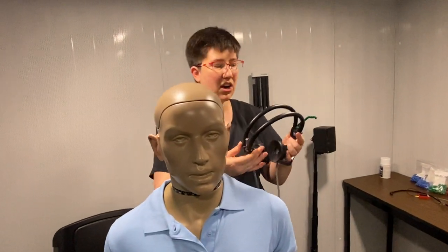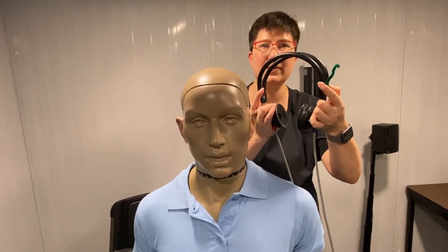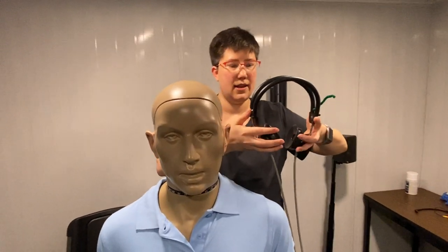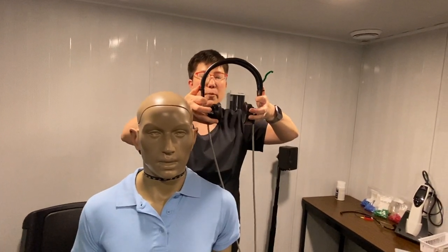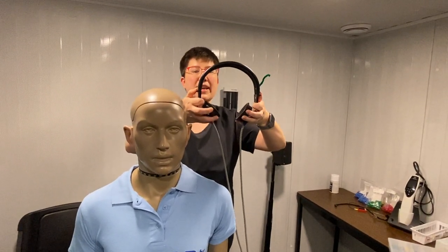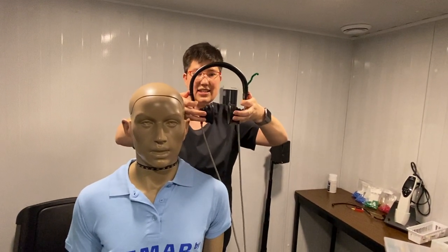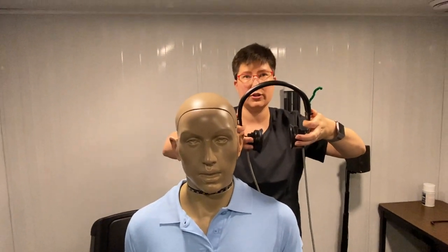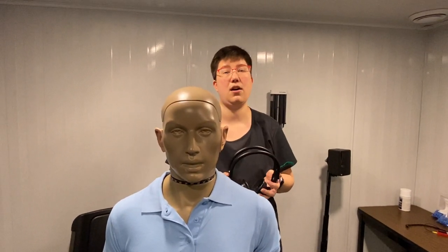If you have slightly larger hands, you can start at an even smaller amount. But it needs to be even, because the idea is that when you push them down, they push down simultaneously and cause the ear cups to go parallel. When the headset is sitting naturally, the cups angle like this, but when you pull up together, they straighten out and even. You should feel them literally pull apart and everything go a little straight. This looks easy, but it's something that everyone struggles with.